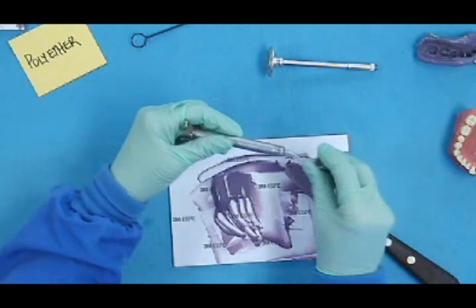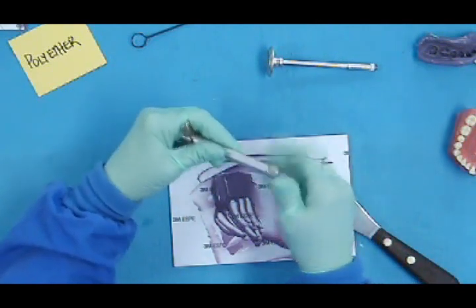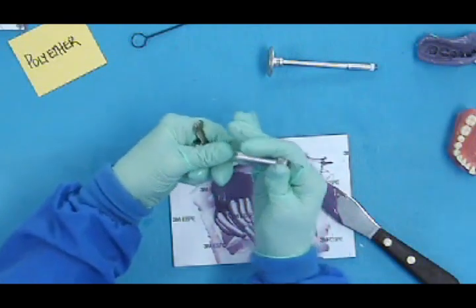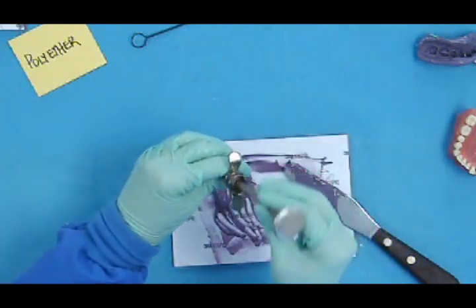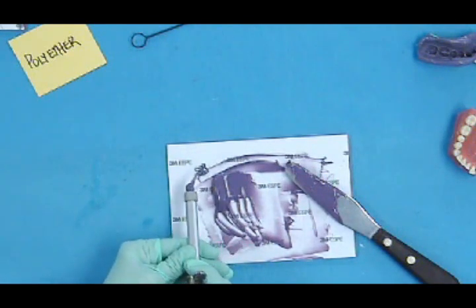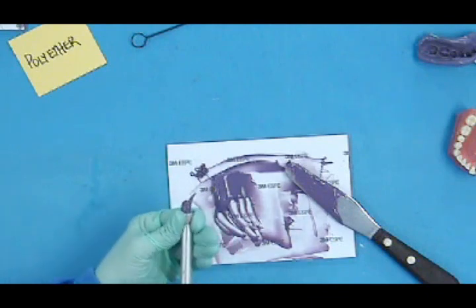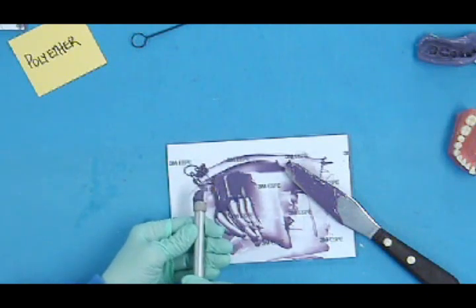There's a nut that goes on the end of that syringe. So you would put the tip on, secure the nut, turn it all the way, because you don't want the syringe tip popping off and the doctor not being happy with you. But you can see that you can inject it the same way.